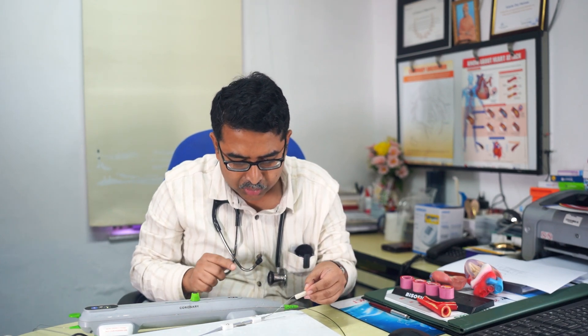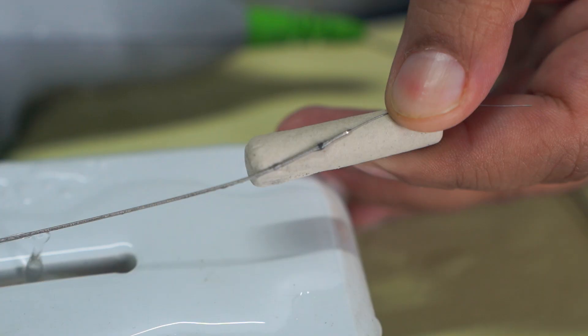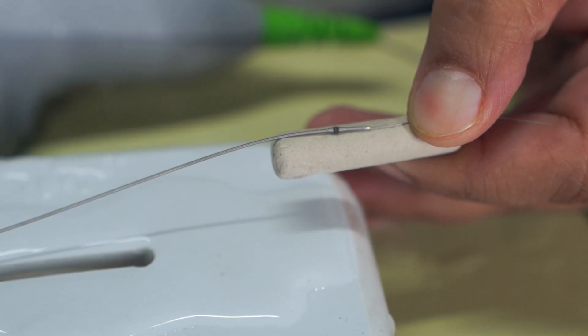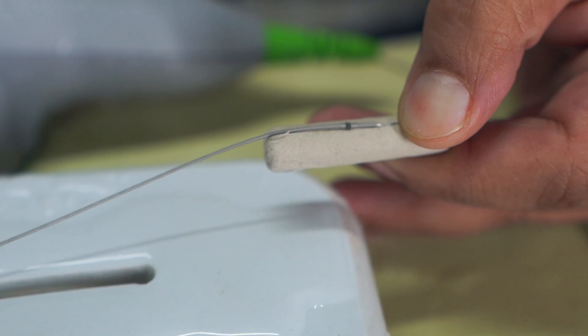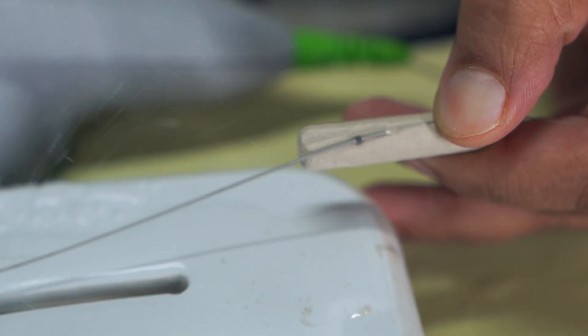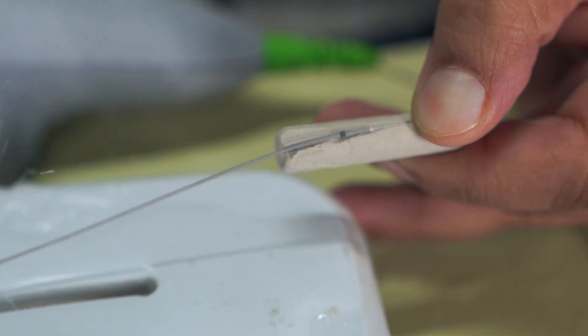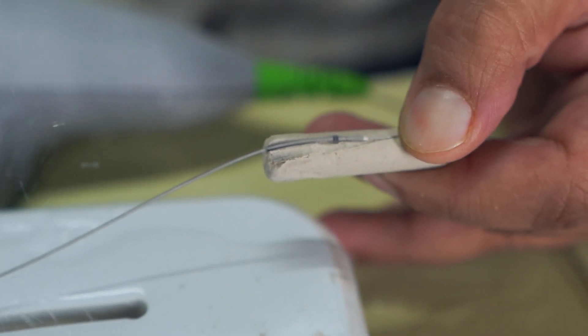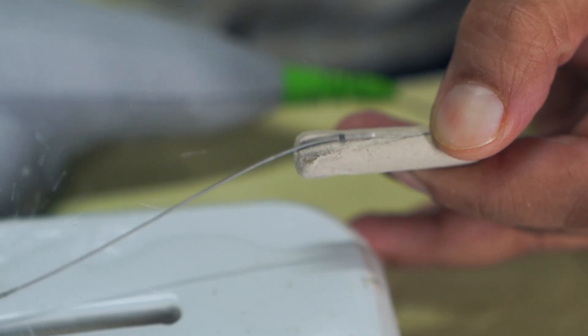I will show you with the help of a chalk — chalk is calcium. Suppose I am holding it like this and I am rotating it, moving it forward. Can you see that the calciums are breaking from the chalk? See, this is what happens inside the coronary arteries.